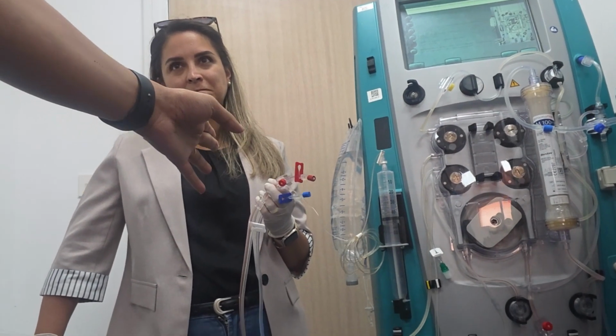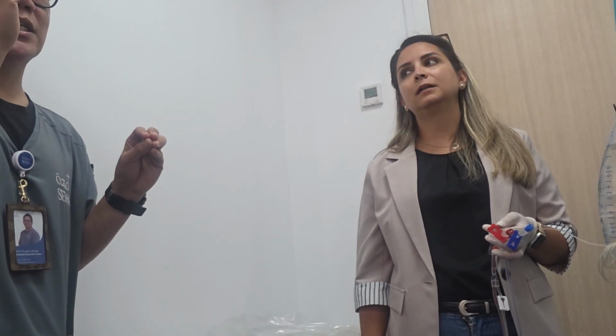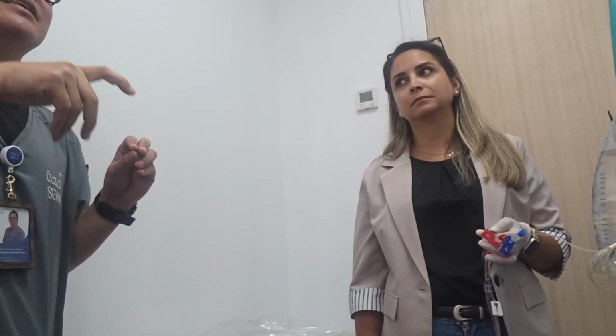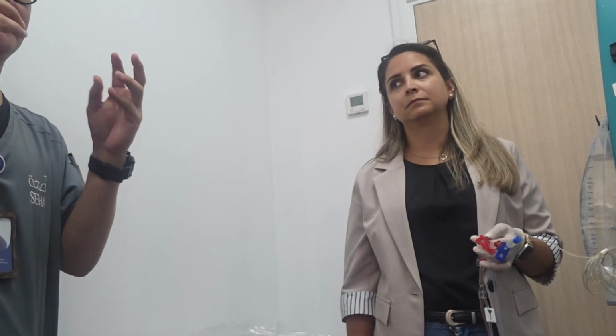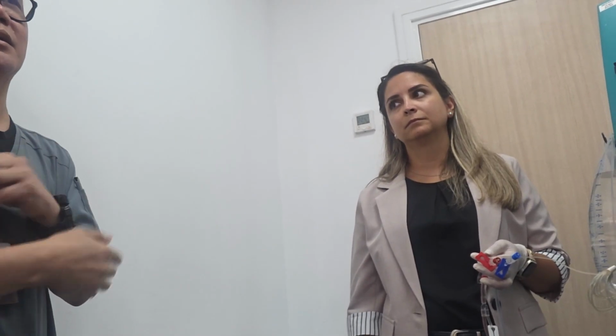See if it is something like that. Instead of putting it on the central line, because we have a lot of new stuff, it's concentrated, no? This is concentrated electrolyte. They can push, they can do boluses and these things. These are far more dangerous than having an inaccurate sample.